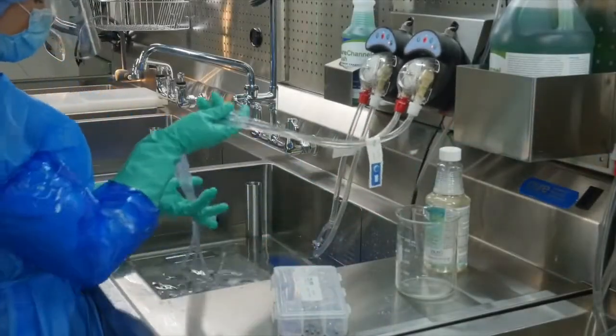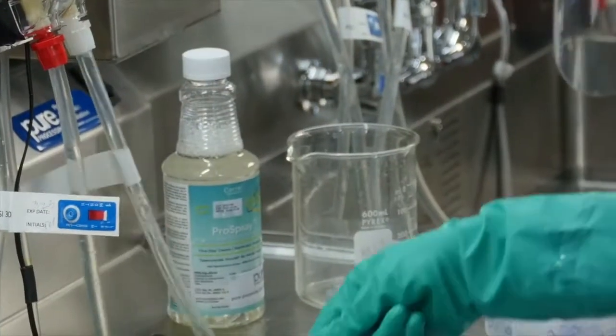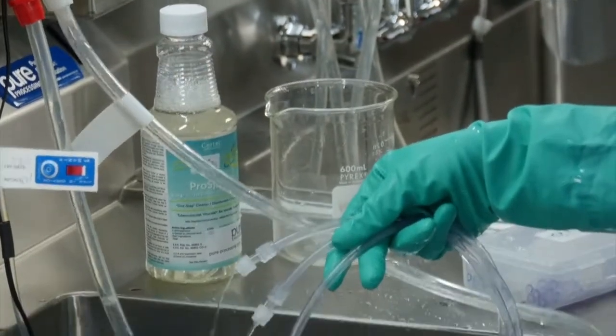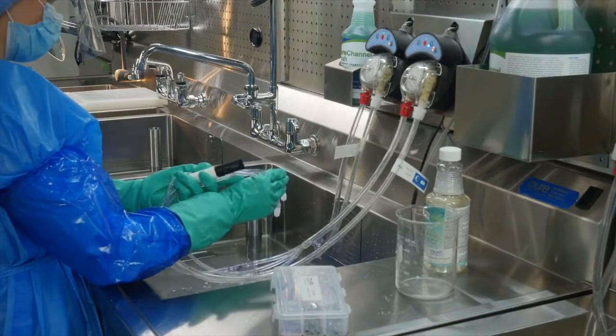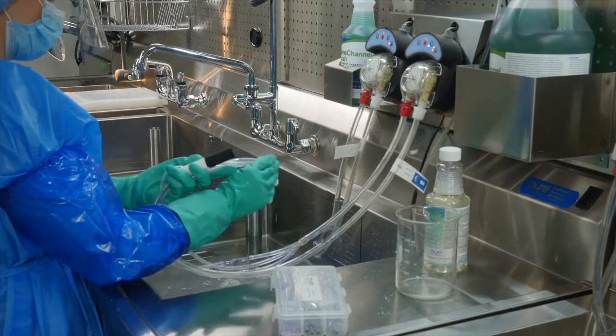Tube sets require daily disinfection to keep them free of hard water deposits and biofilm build up. Ideally tube sets are disinfected after every shift but at a minimum of once a day.